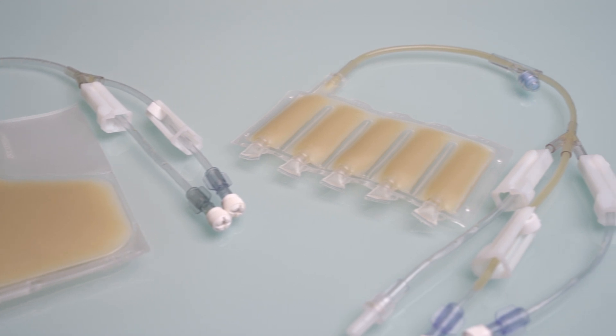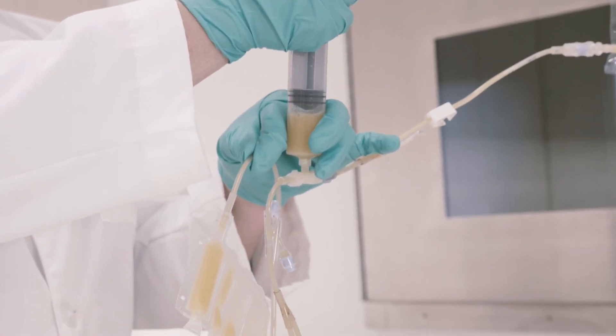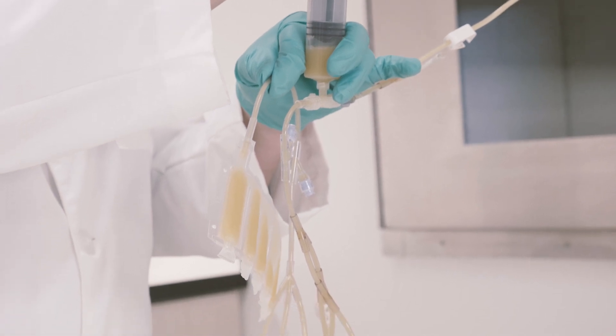One key feature is its ability to be filled and sealed into individual 4 to 6 milliliter chambers, providing flexibility post-thaw.